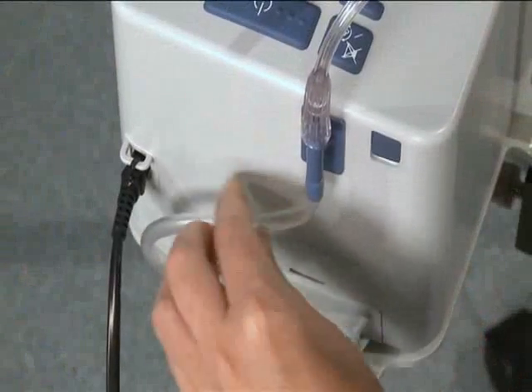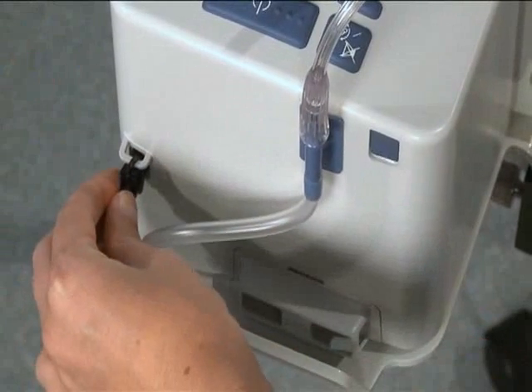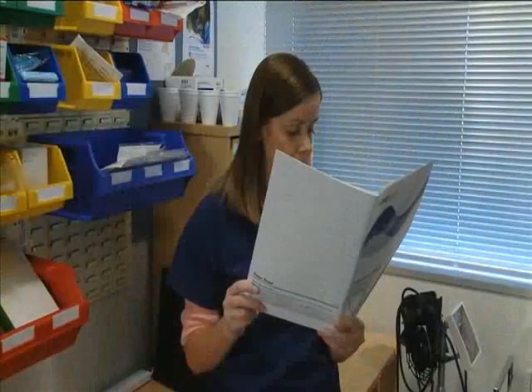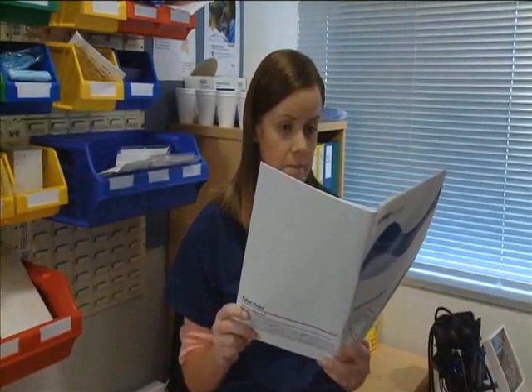Before use, make sure the oxygen kit is securely attached to the filter holder, that the filter holder is not loose, and that the power cord is secure too. Be sure to read the warnings for oxygen use in the operating manual before using oxygen with the AIRVO.